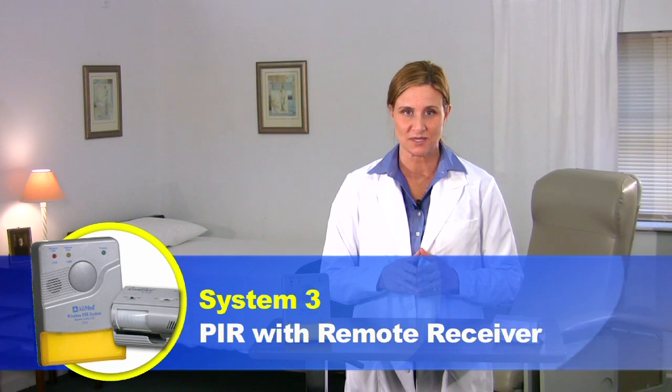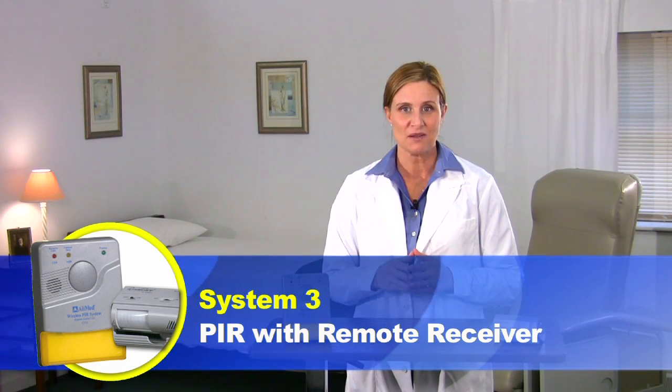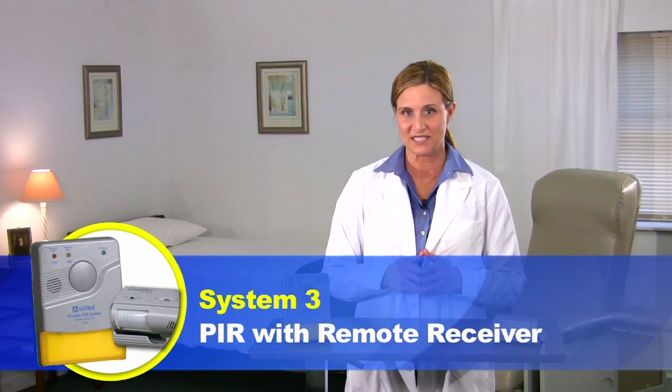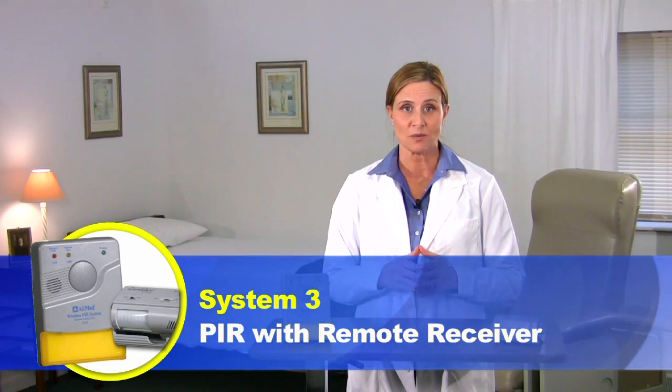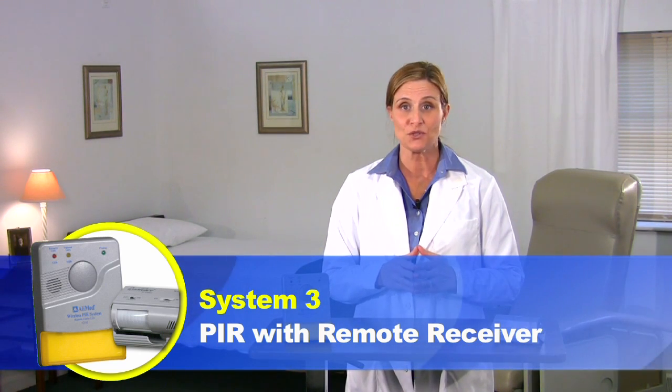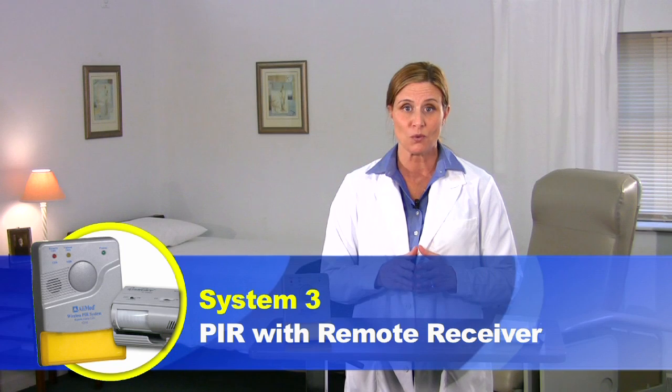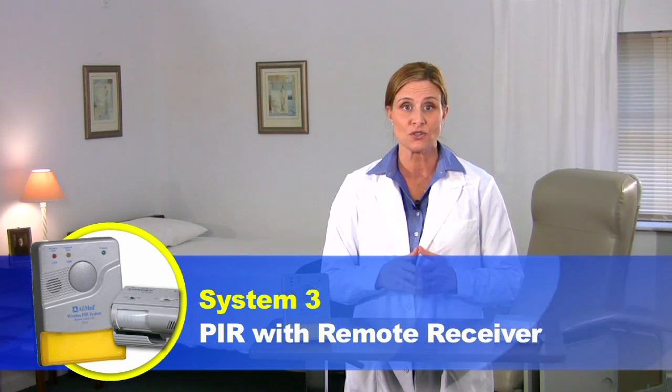You've just seen video 3 of the PIR motion sensor alarm systems featuring system 3 motion detection bed alarm and remote receiver. There are three other PIR alarm systems. If you would like to use your PIR alarm unit alone with a nurse call system or as a nurse call remote receiver combination system please see the separate instructional video for each. I'm Heidi Young for AlliMed. Thank you for viewing.